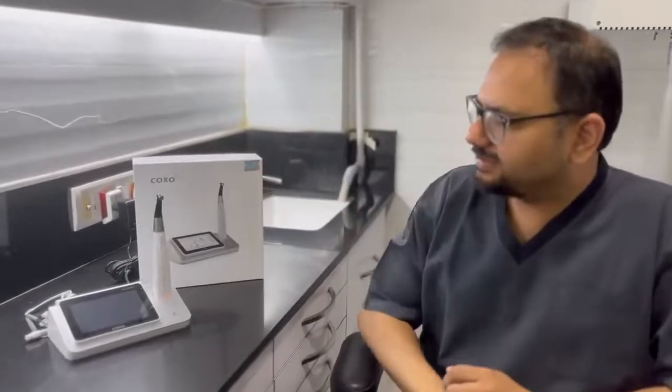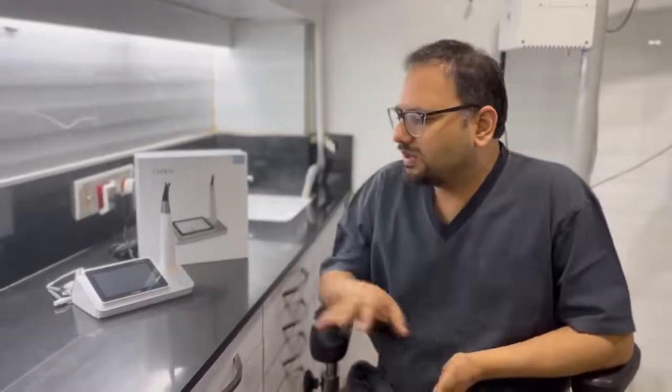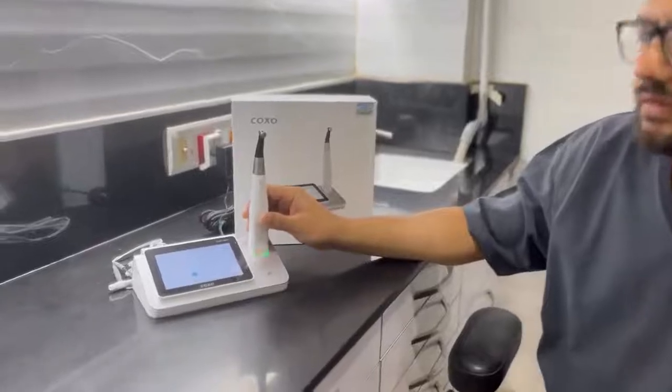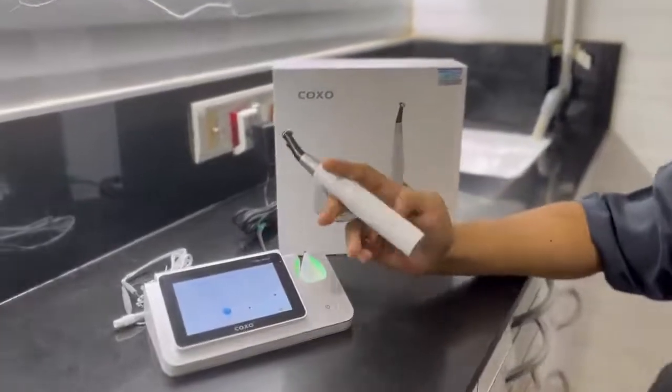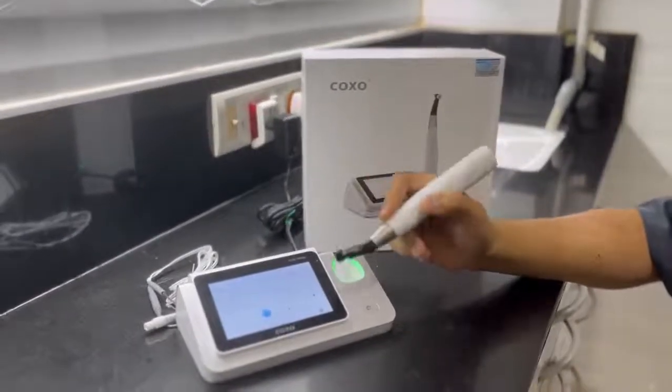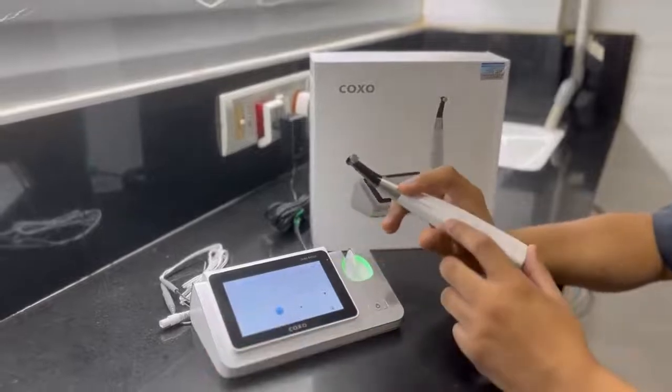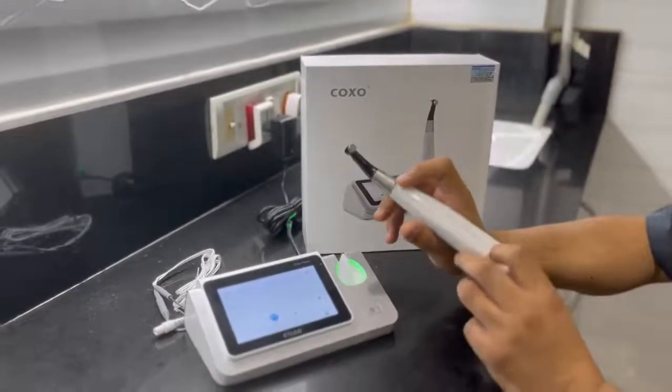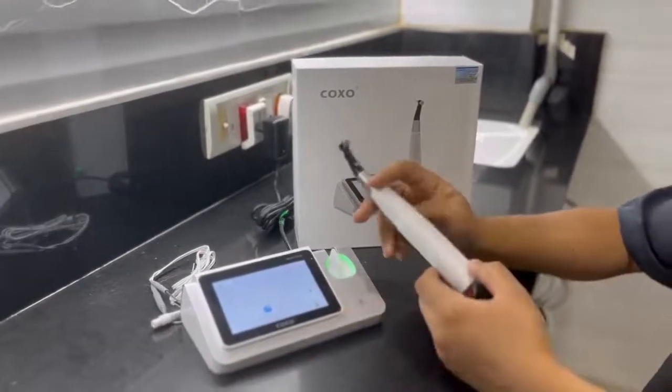The device is called C-Smart Pilot and it's one of the new endomotors that they have launched during the year 2022. The unique thing about this is that it comes as a two-part system. There is a base module right here and a cordless handpiece. The base module has the touchscreen display and the cordless handpiece does not have any display but it connects to the base via Bluetooth.